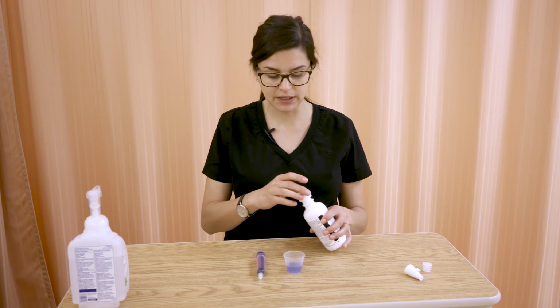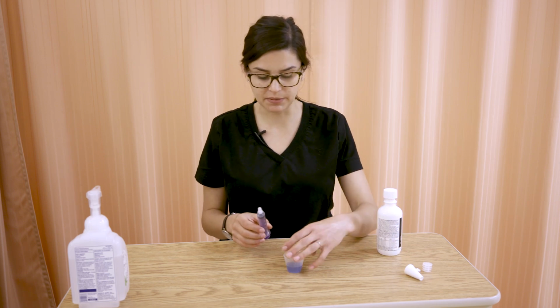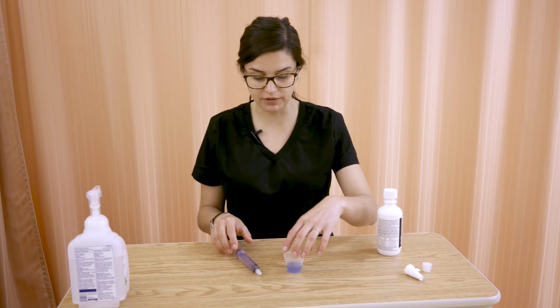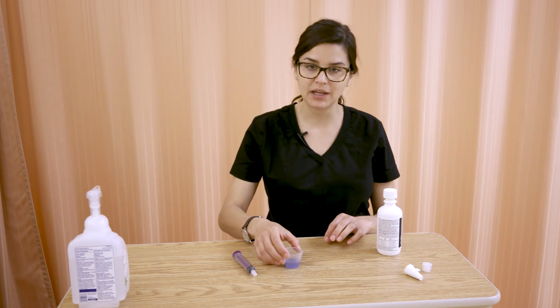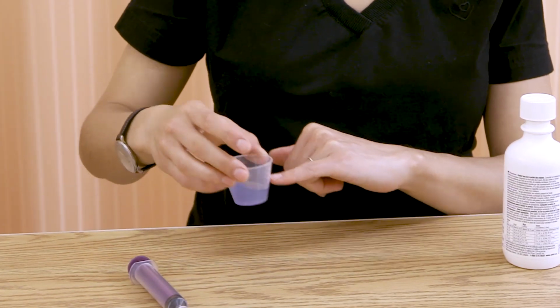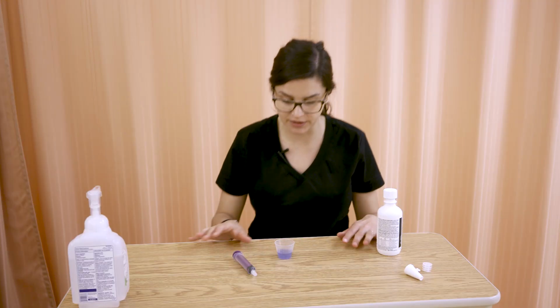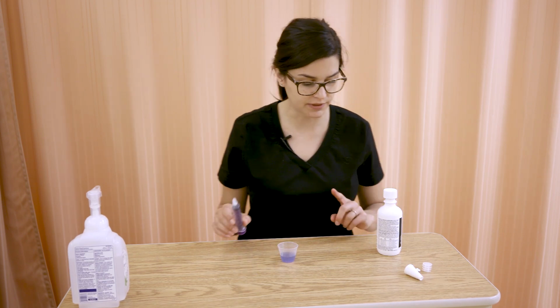You're going to use an oral syringe when the amount of oral suspension you need to give is 10 mLs or less, so that you can get that specific, accurate volume. You can free pour or straight pour into a med cup if it's more than 10 and visible on here. So say it's 20 mLs or 15 mLs, you can use the markings on that cup and get at eye level and do it that way. But 10 or less, we're going to use the oral syringe.